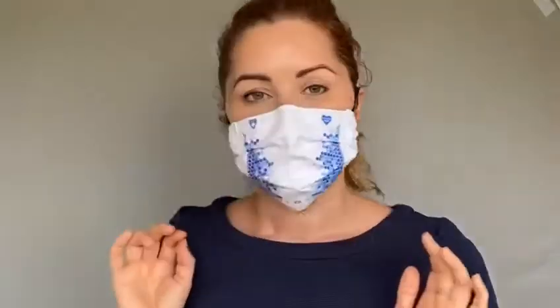I prefer to wear the mask with the adjustable headband. I find it more comfortable that the mask is not putting any pressure on my ears. If the user prefers, it can also be worn without the headband, like this.